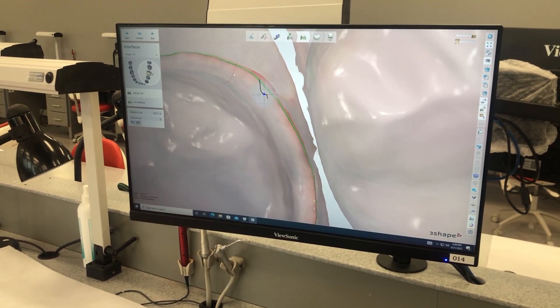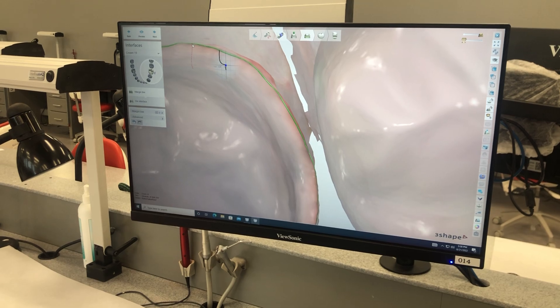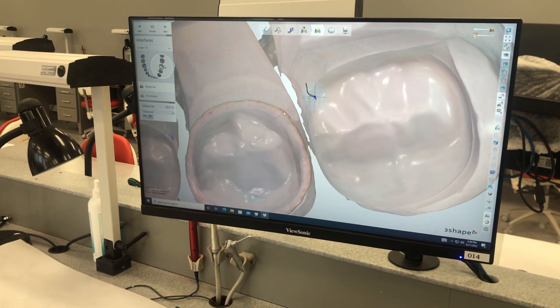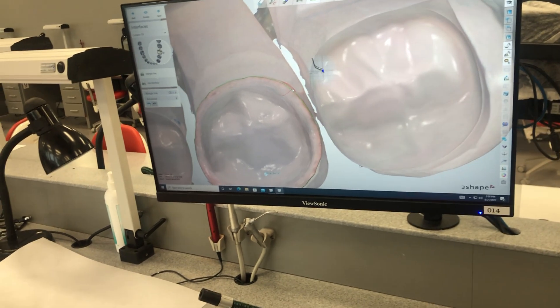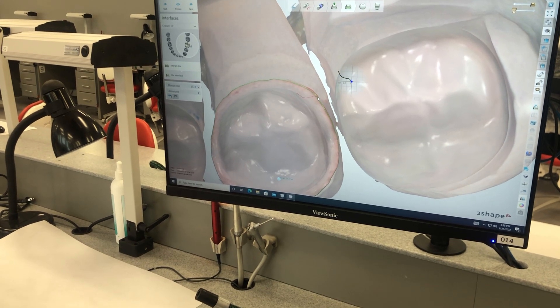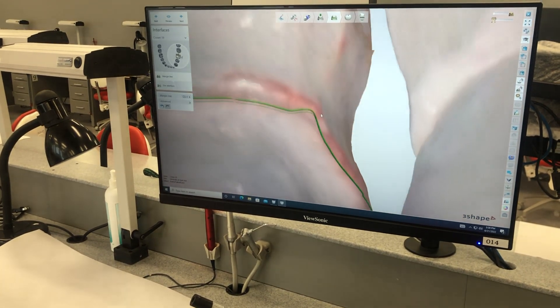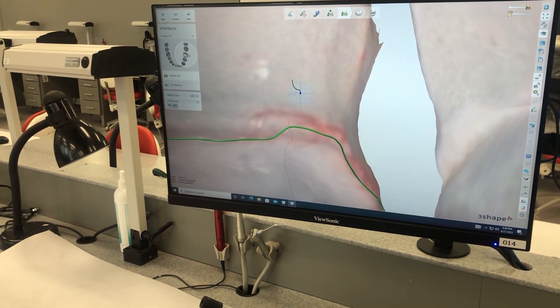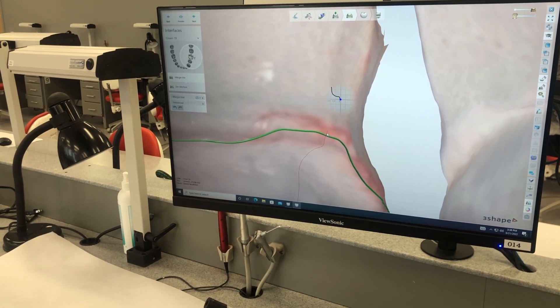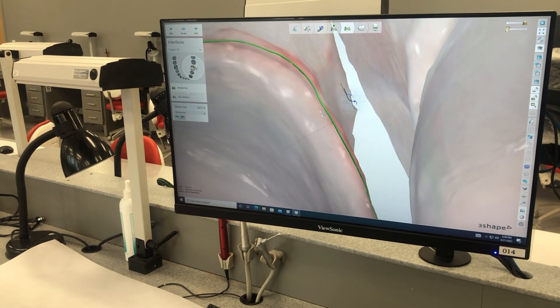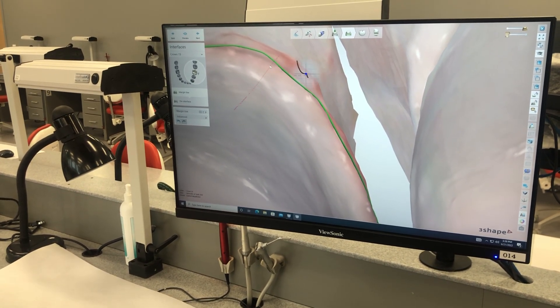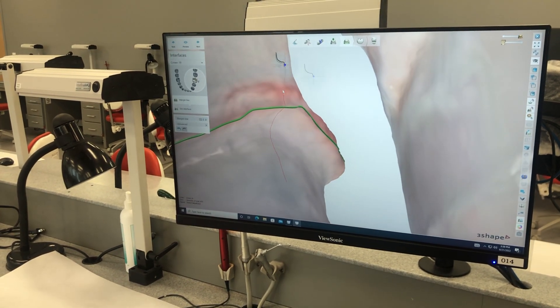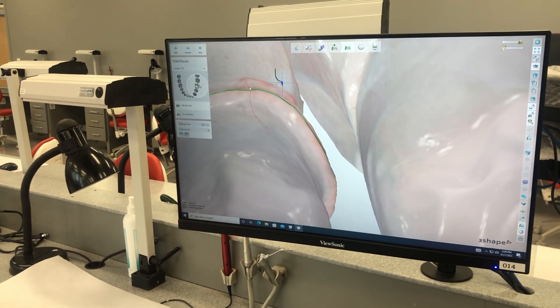We're past the margin over there, so we're going to pull it up. This prep actually looks like it has a little bit of a double margin. If we zoom way in close, we can see where our red line is and where the computer is telling us the margin should be. It's telling us we're low — this is where the margin is, so it was marked wrong with the red pencil. You just click on your margin on the way around and it'll correct it. That's why it's important to get your red pencil in the same place.